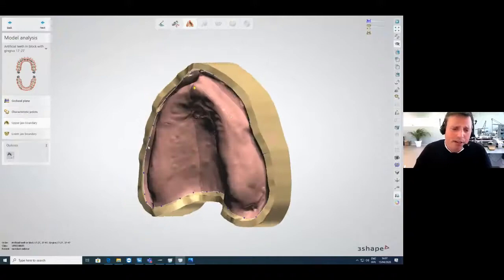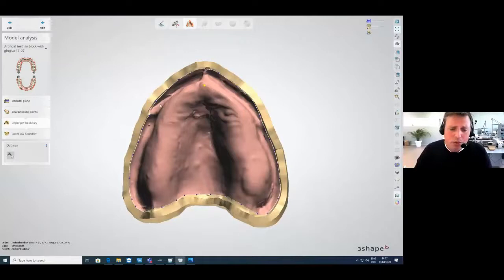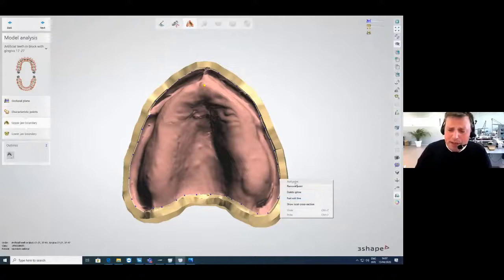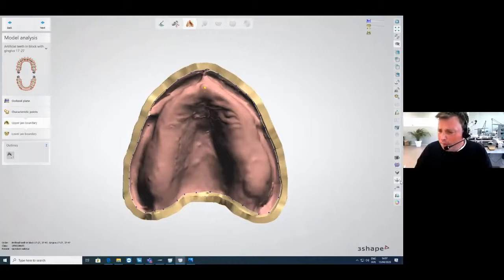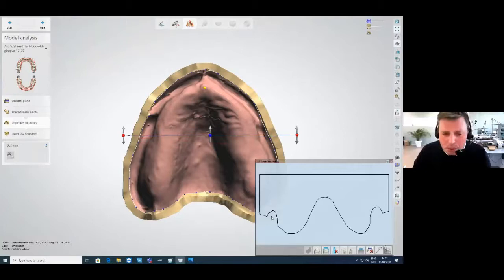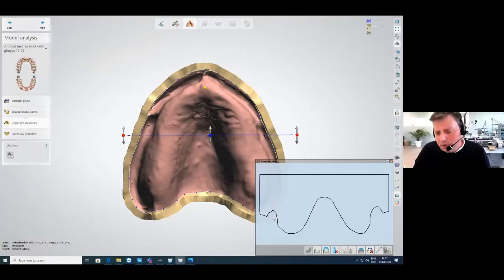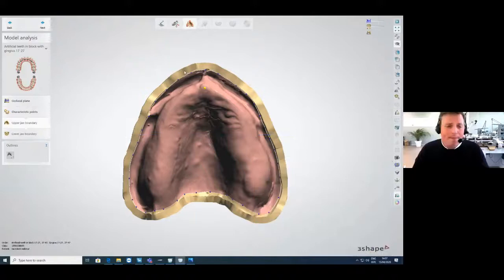Hit next and you'll see the upper boundary step where you draw the boundary of your denture base. You can free-draw by clicking points using the fast-edit spline. One important tip: if you're doing any border molding, always set your outline on the inside of the buccal side of your impression. Do not set it in the middle, otherwise your border molding will be cut in half. If you do an impression with border molding, always fully fill the border — this is really important.